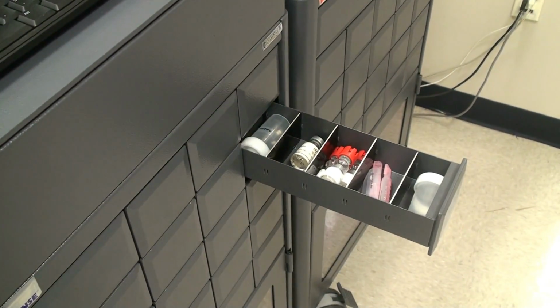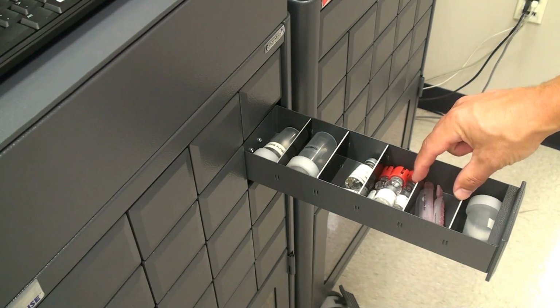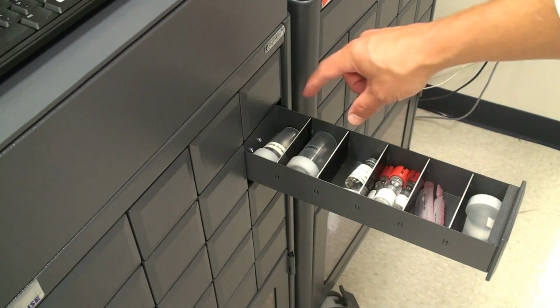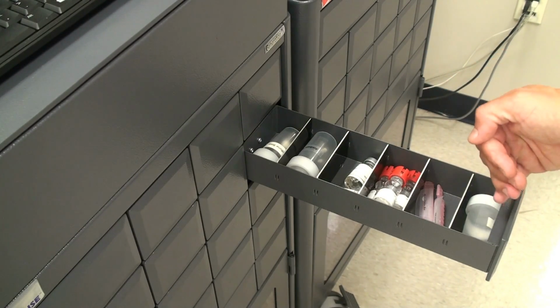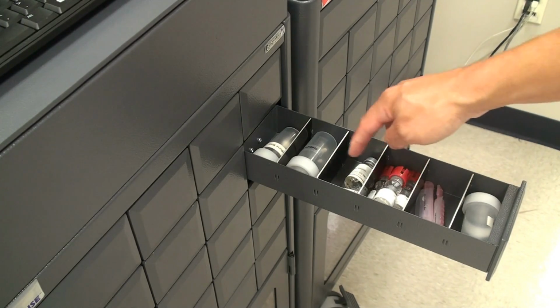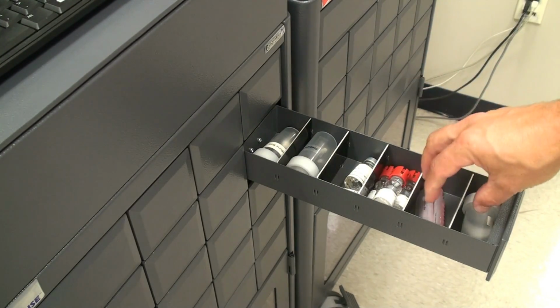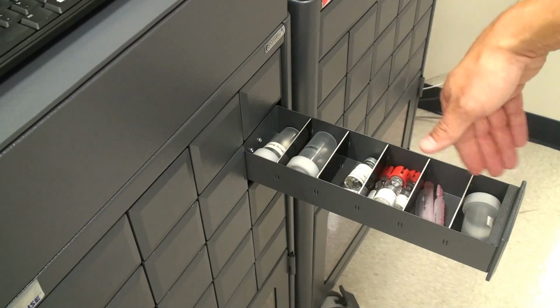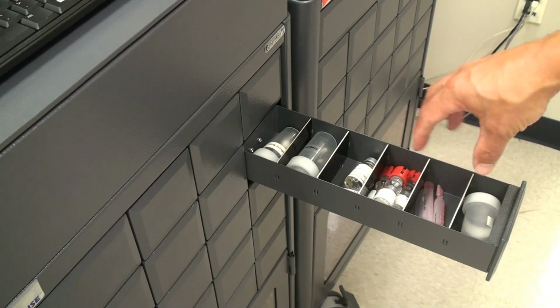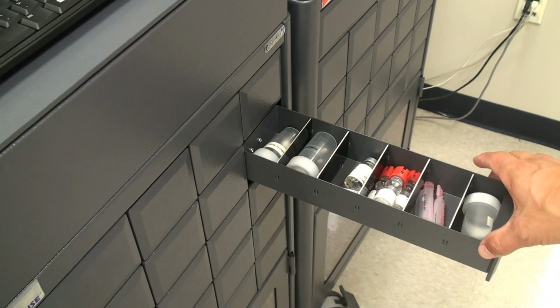If you'll notice how the drawers work, once you open them up, the drawers work with the slides here breaking up the areas of the large drawer, and starting from the forwardmost position is A, B, C, D, E, and F. So if we were to remove one of these, it would still be A, B, C, D, E, and F, or however many actual spaces you may have. In this case, we're using all 6 areas of this large drawer.